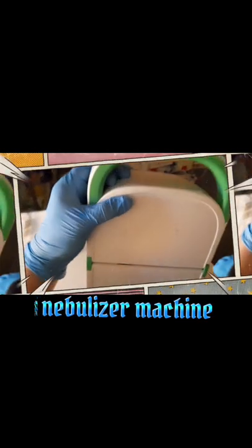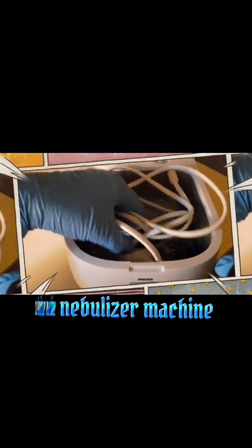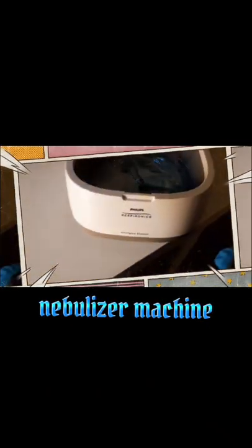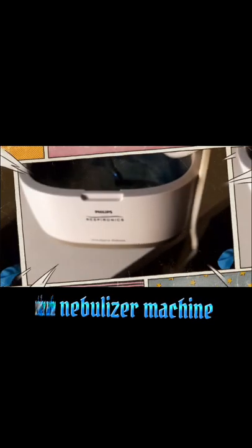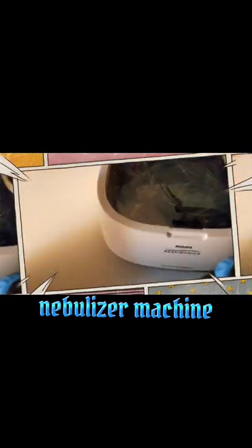It's so lightweight, probably around 400 to 500 grams. You can open this one — push, and then lift the head. Inside is the charger. It's a built-in charger, because the machine will not operate when it's not charged.